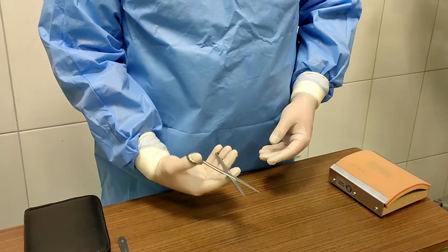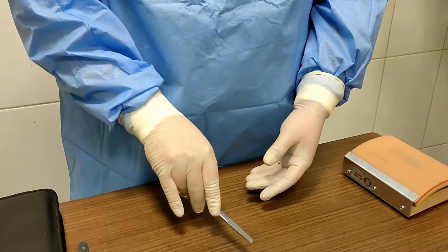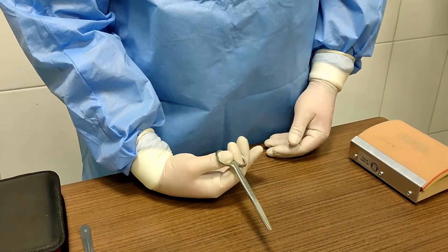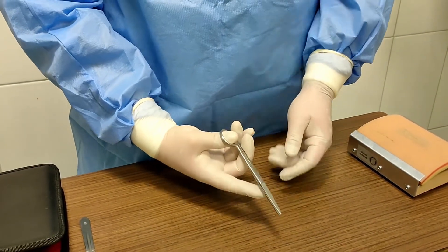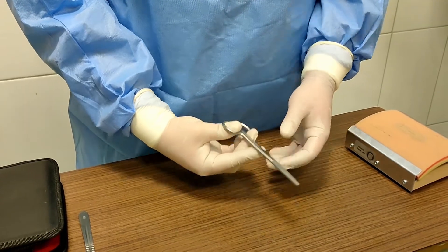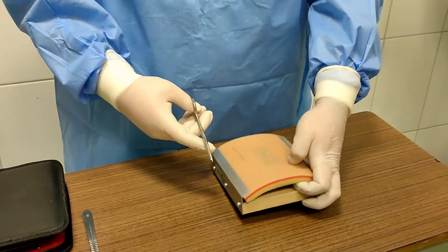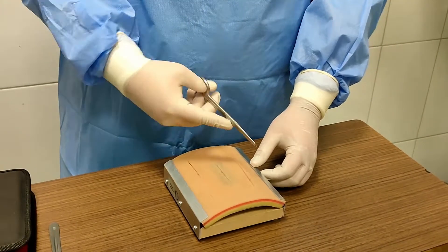Here we have scissors. They are used for cutting tissue. They are held by placing your thumb in one ring and your ring finger in the other ring. Your middle and index fingers will help you to balance and control the scissors.